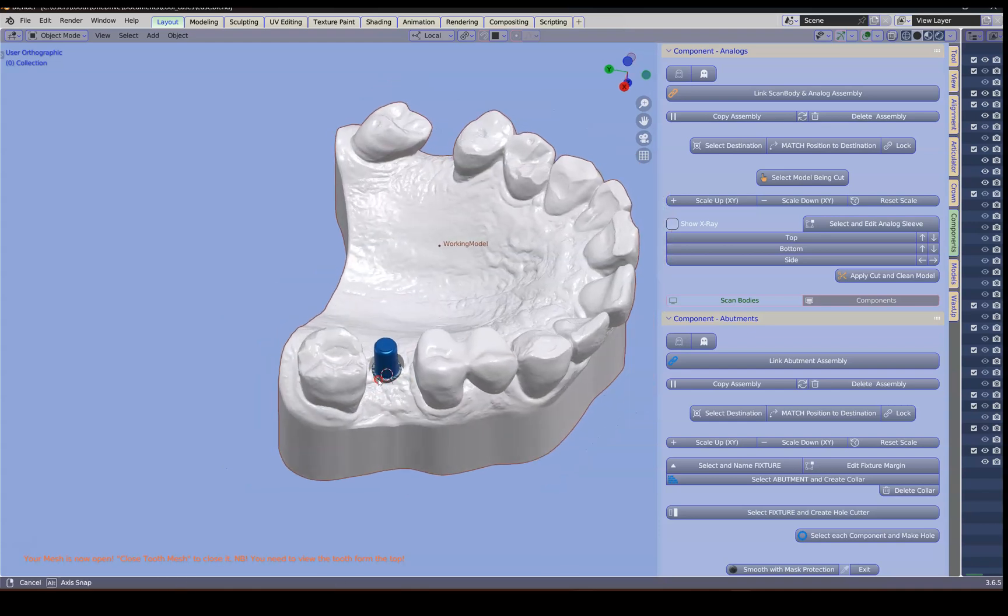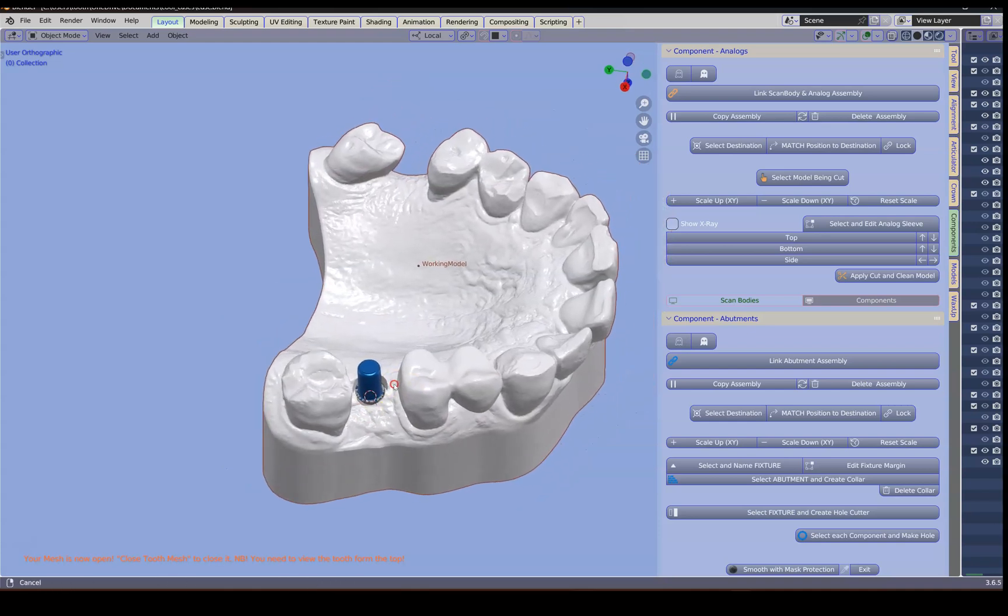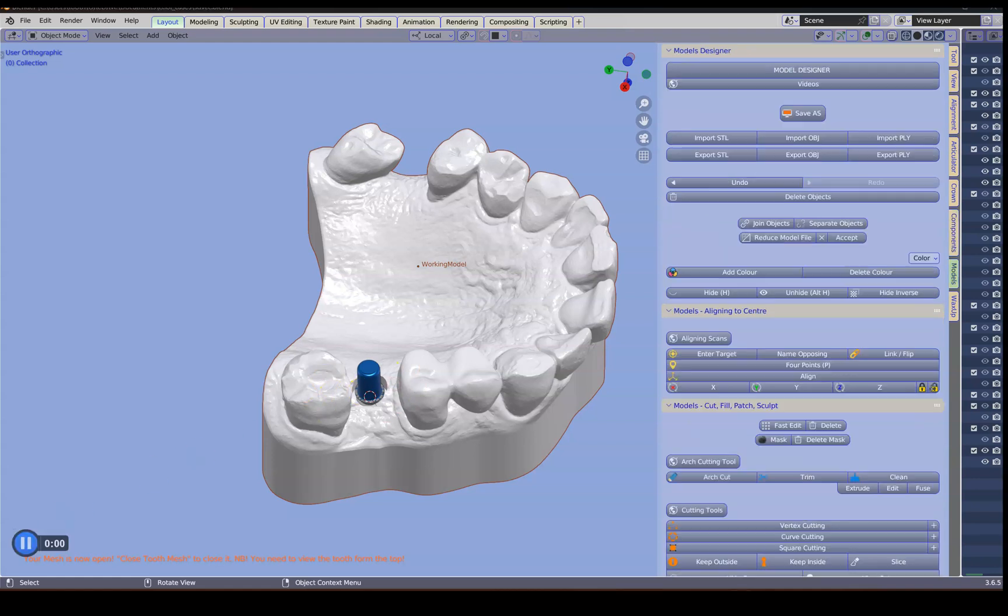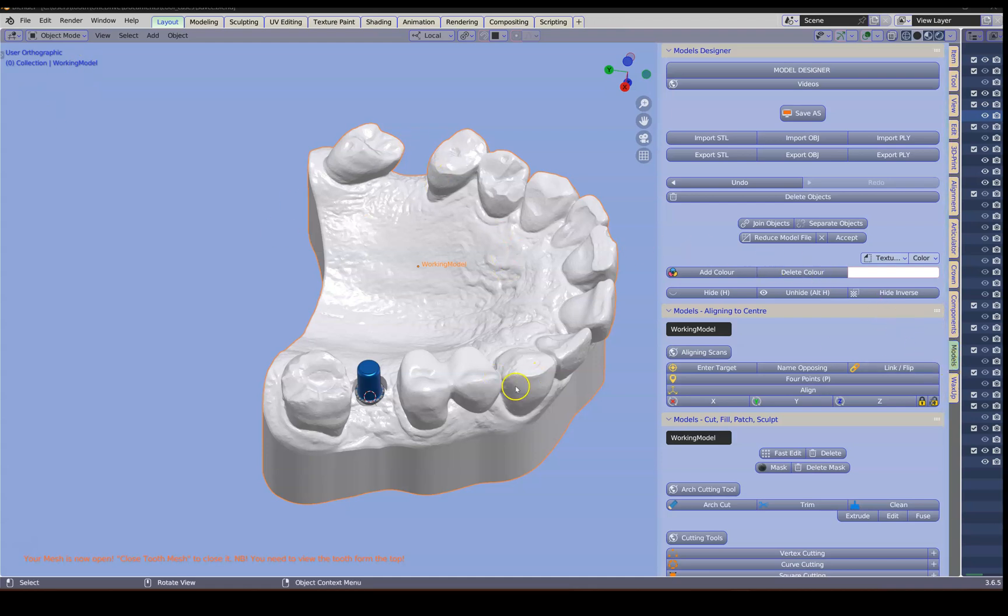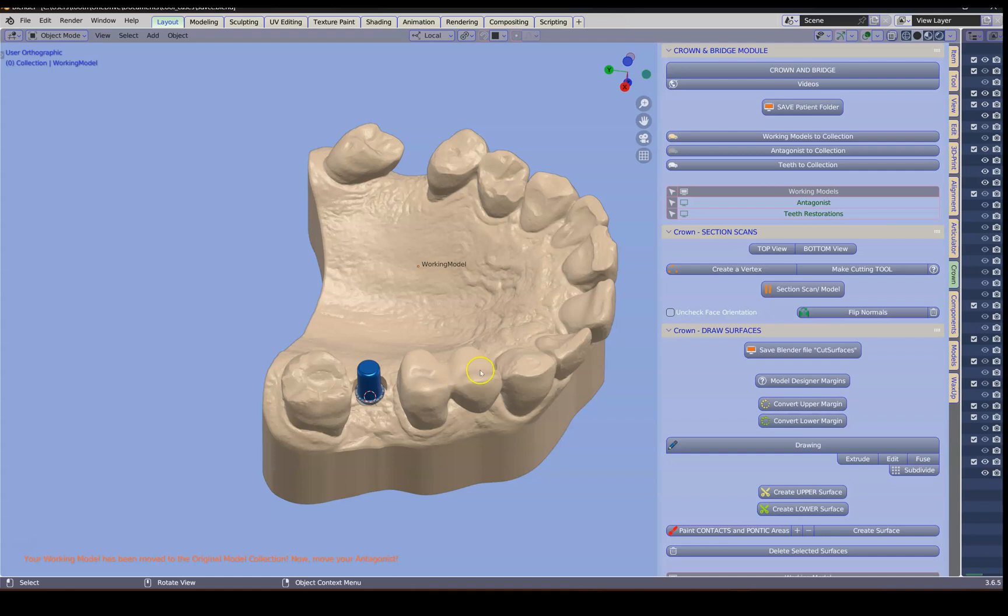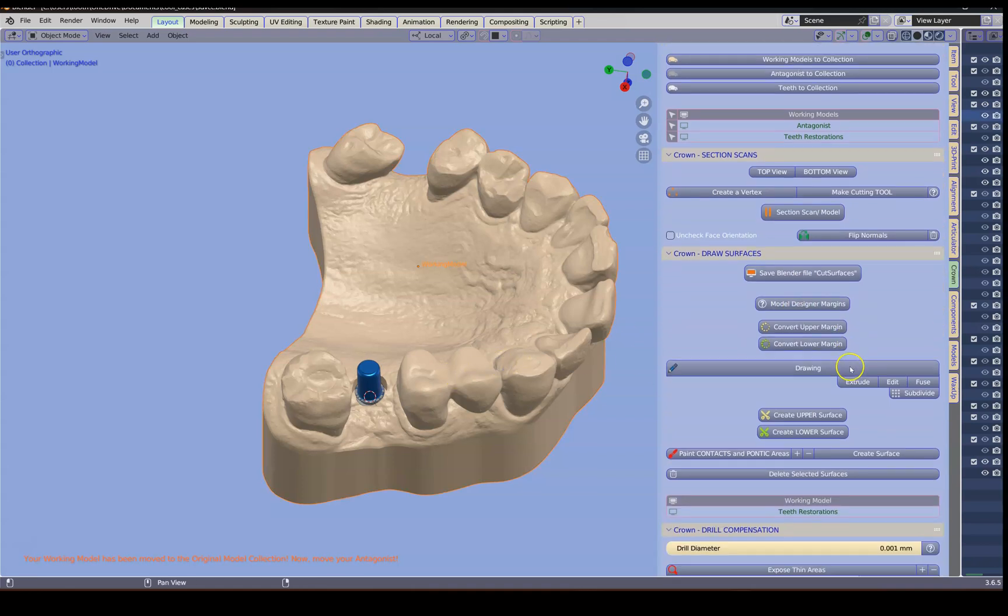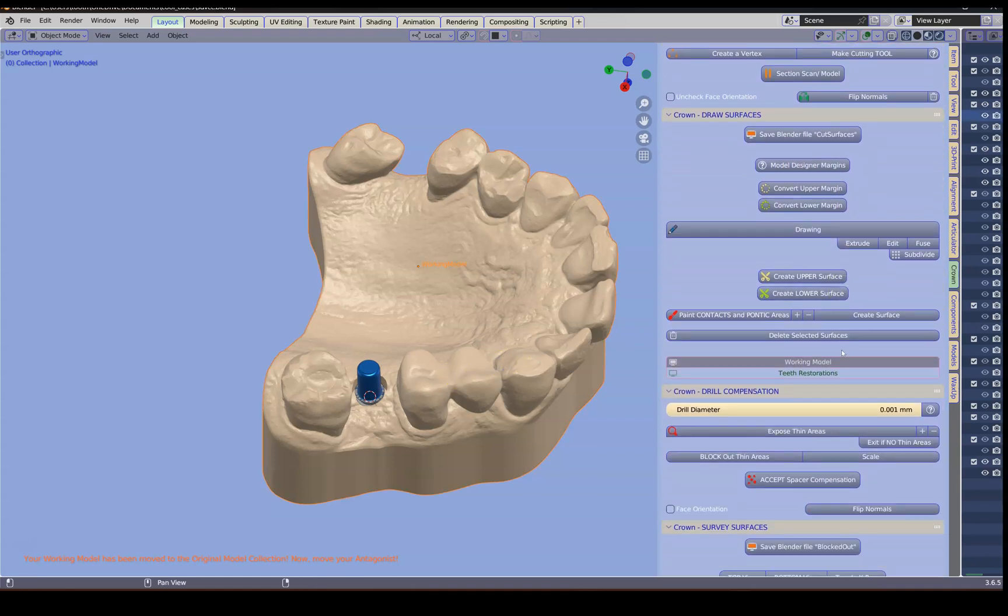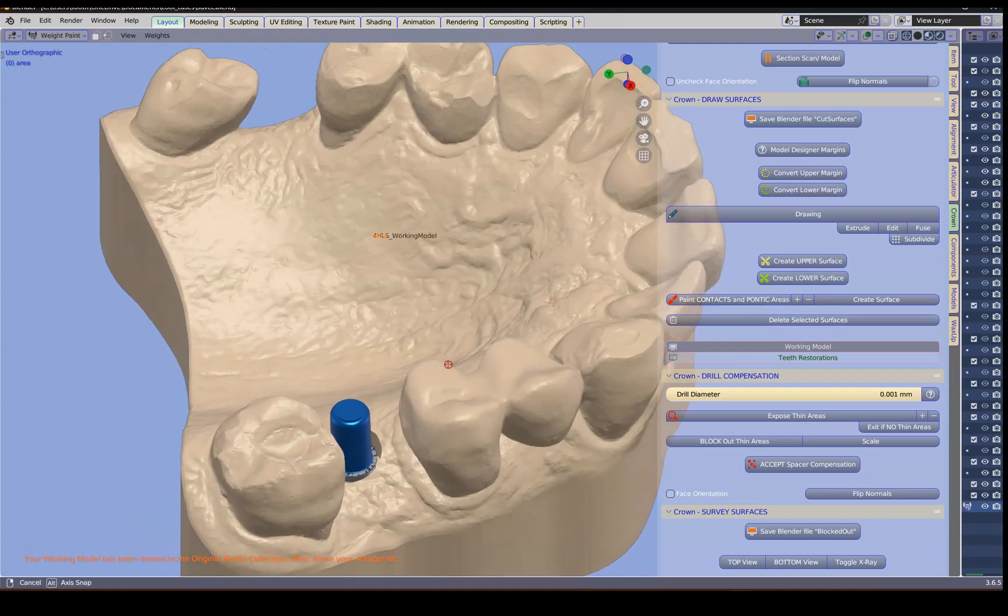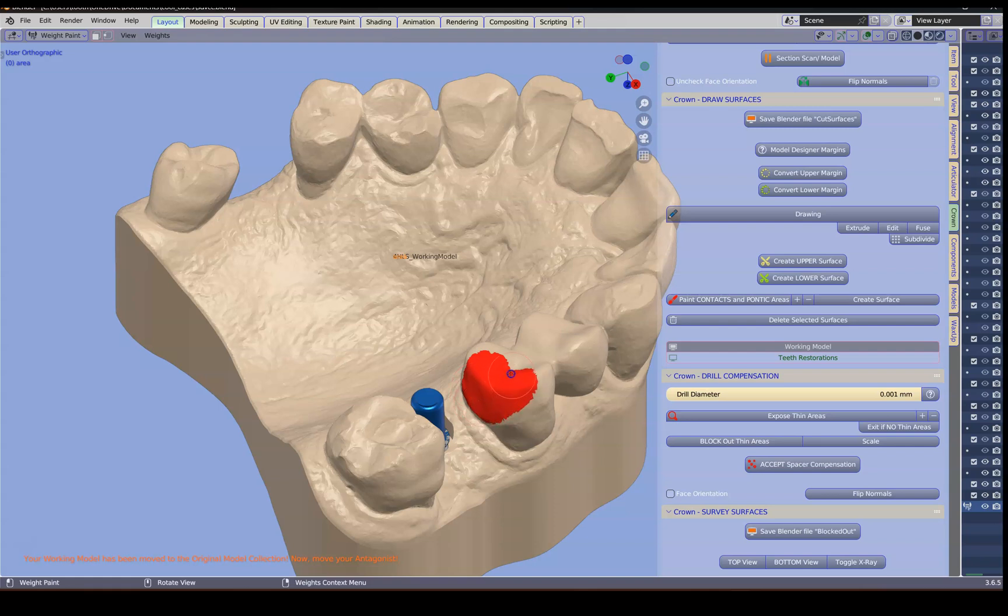Now we're going to go to the next bit to make our implant crown. Back to the crown module. This has only changed color. But it's still in the correct collection. Nevertheless I'm just going to pass it through one more time. So from here we're going to mark the contacts which are with this one over here. And I'm going to just paint the contact area like this. So this is a pretty new feature that we have.